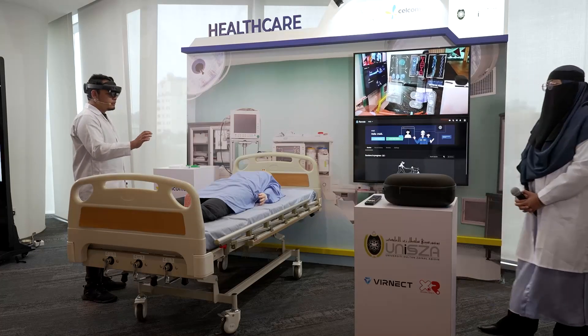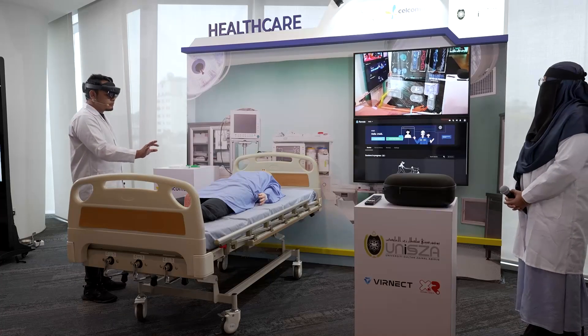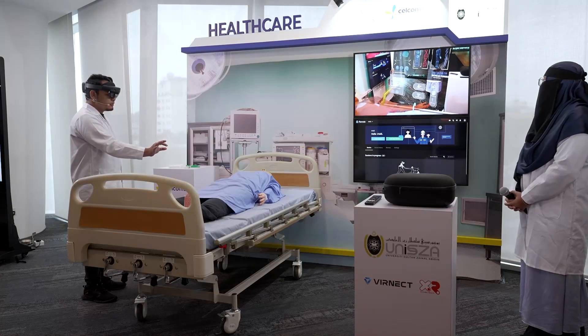The guidance helps us navigate — I need to click the heart rate monitor, so I click the heart rate monitor button.